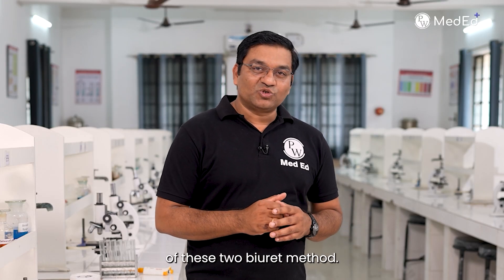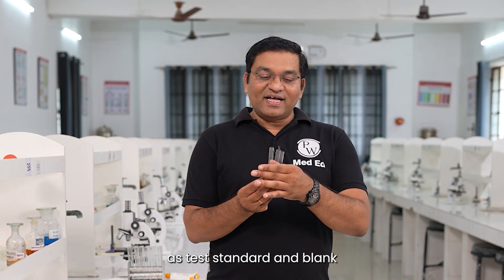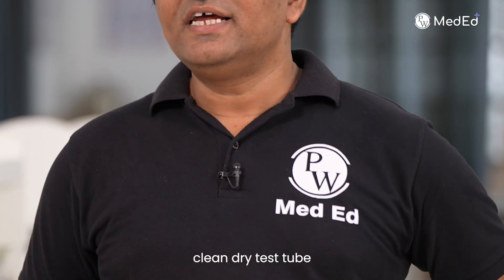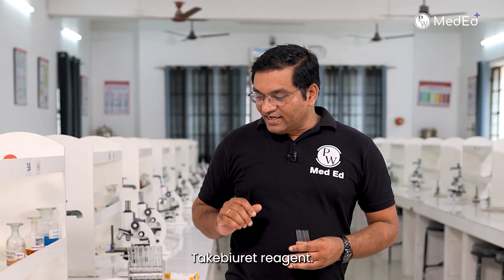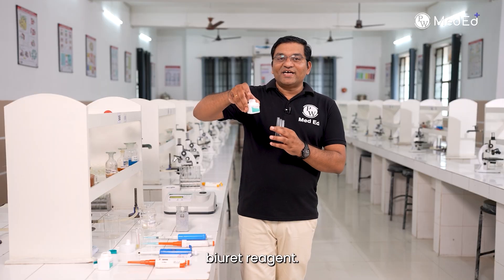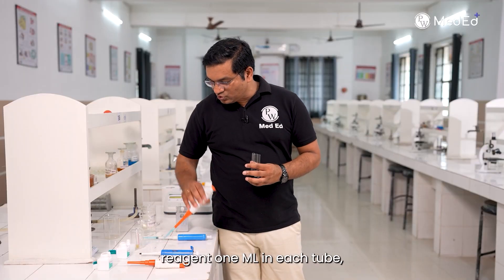We will now discuss the procedure of the biuret method. Take 3 clean dry test tubes and label them as test, standard, and blank. Take biuret reagent — this is the total protein biuret reagent — and add 1 ml of this biuret reagent to each tube.